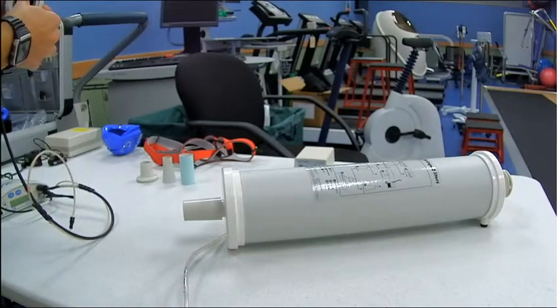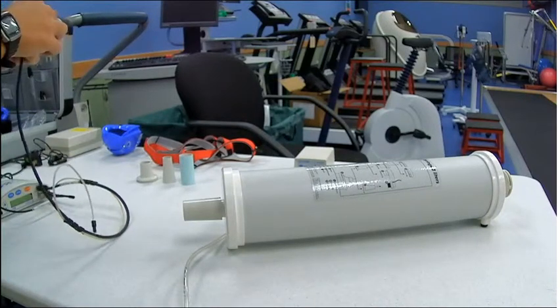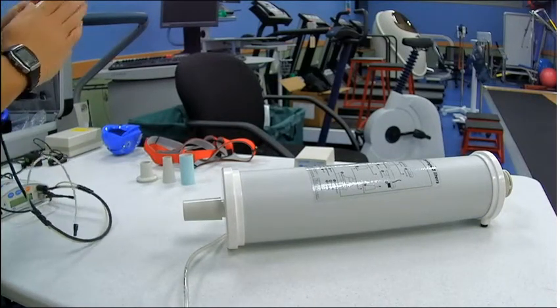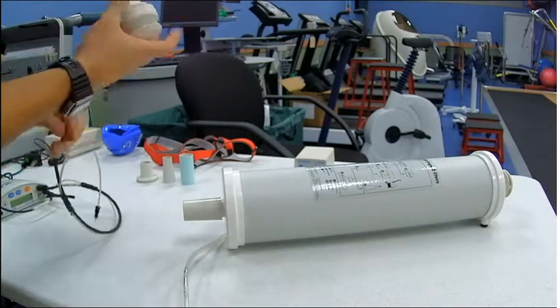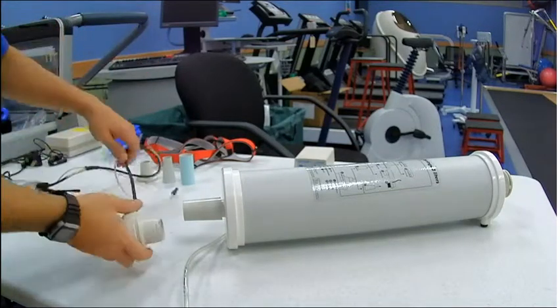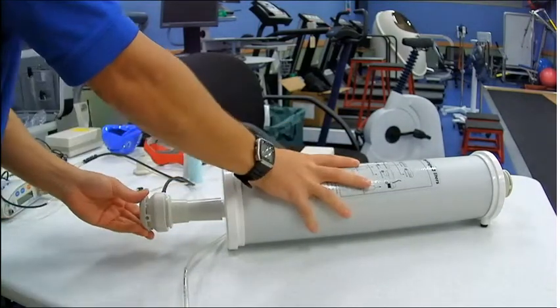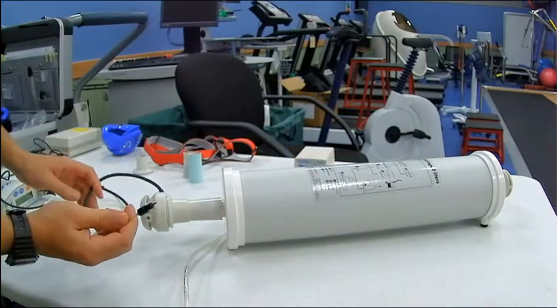And once that's complete, you'll see that I'll push the adapter side onto the fan, and it fits all perfect just like that. Push that onto the adapter we just put onto the syringe.